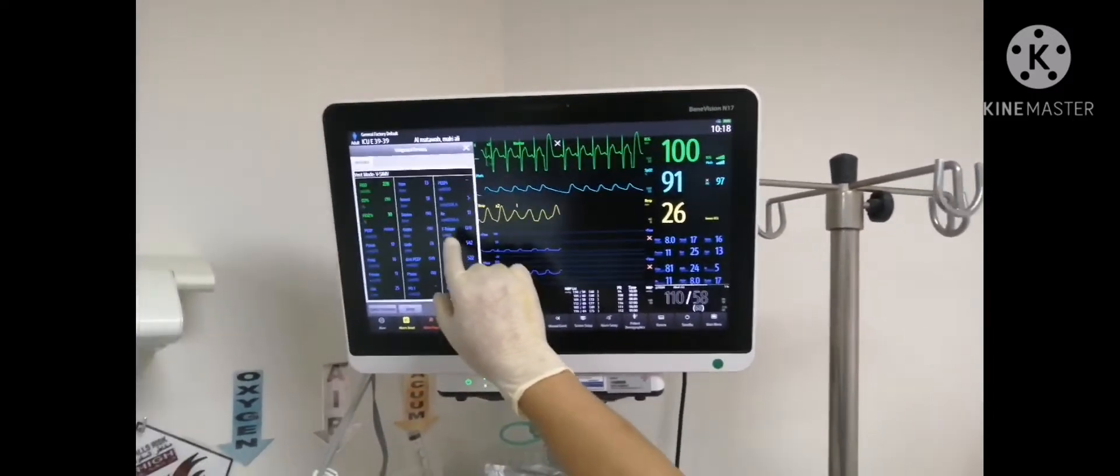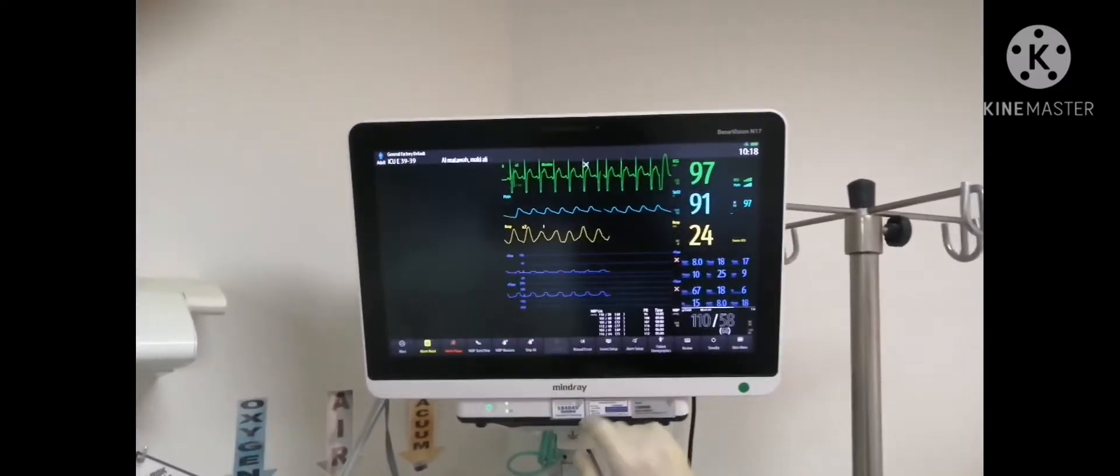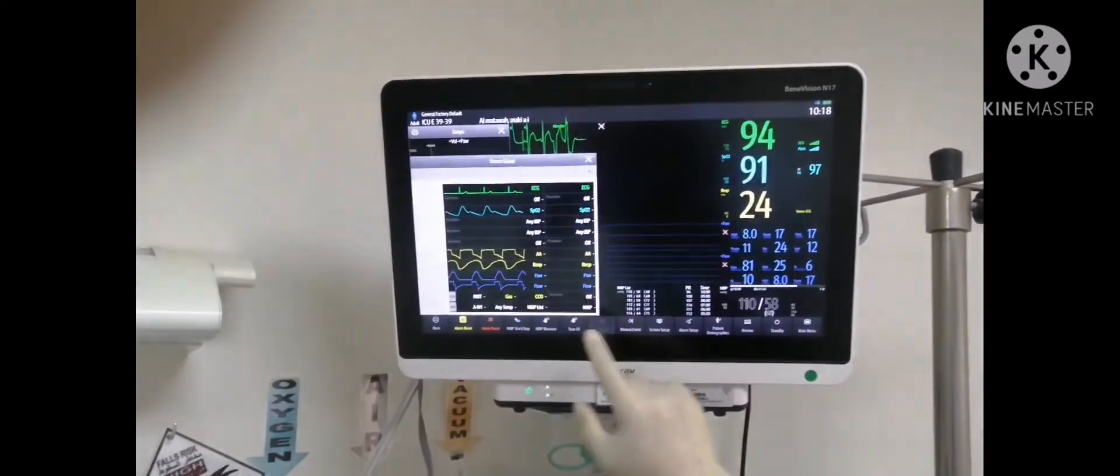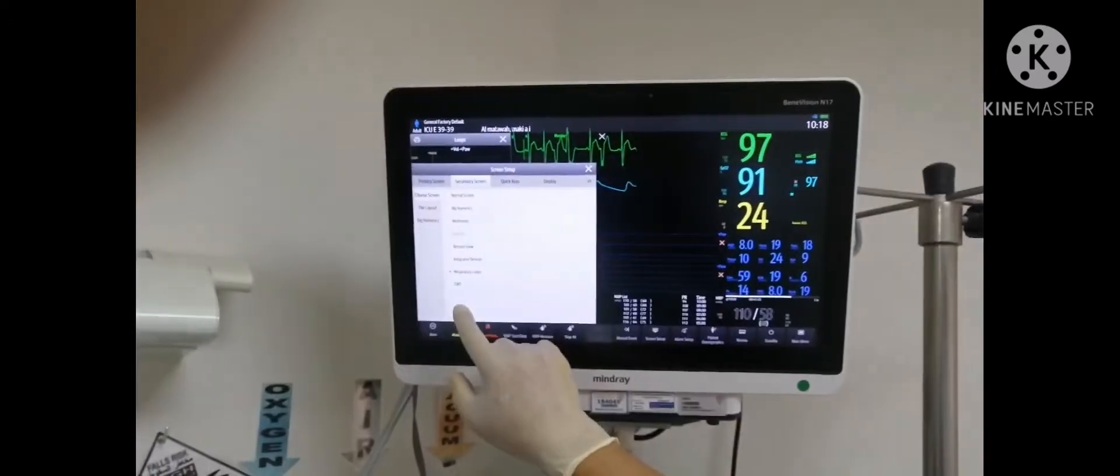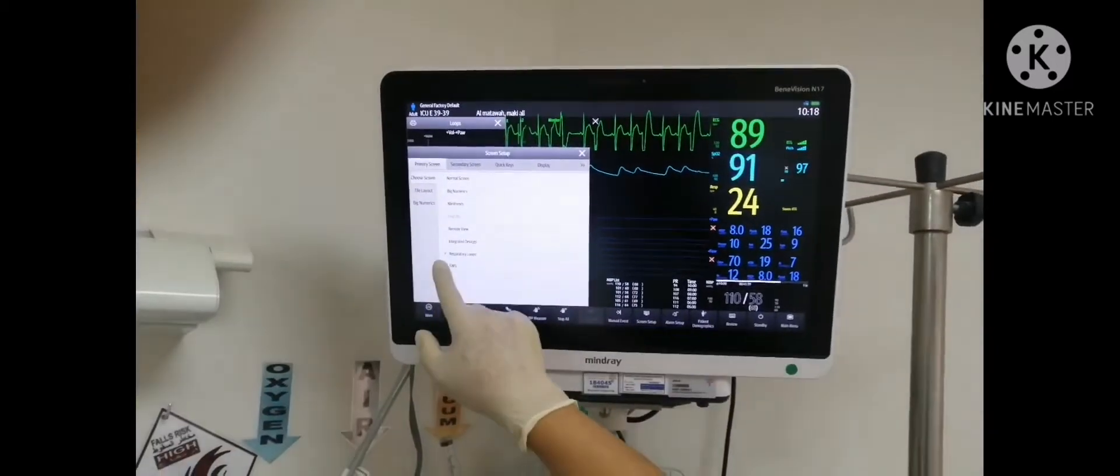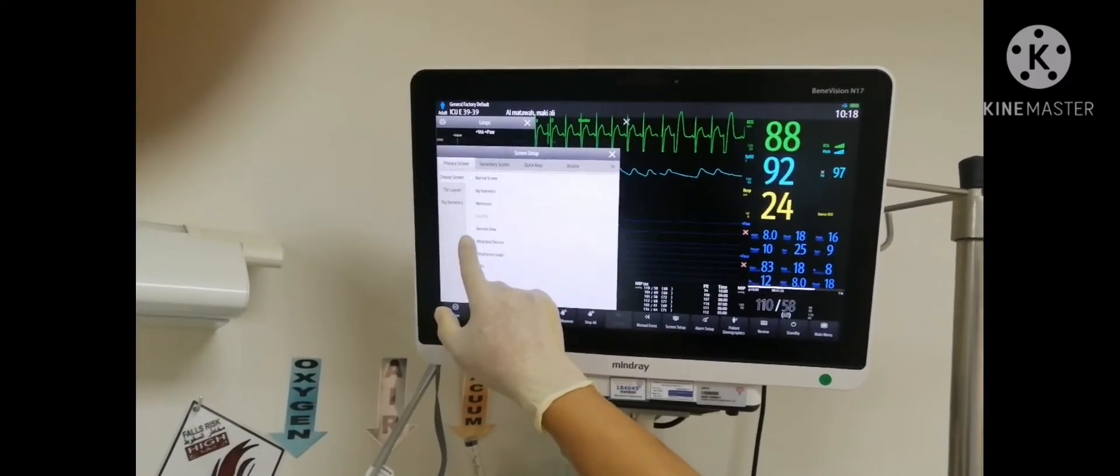Our settings is this one. Setup. Go to the secondary screen, make it integrated. Primary screen, make it integrated device. This one.